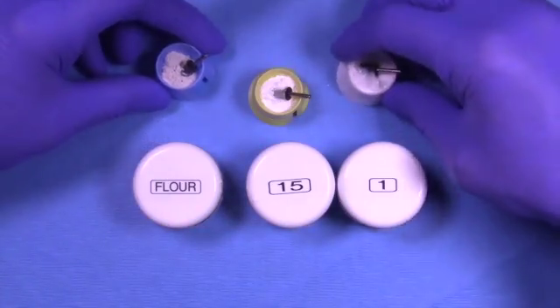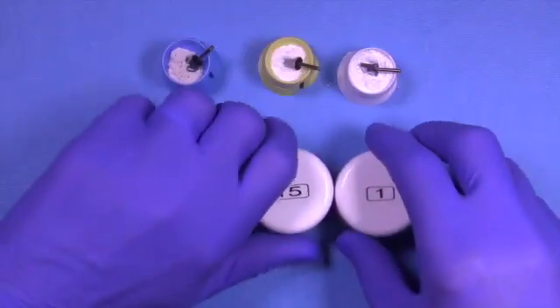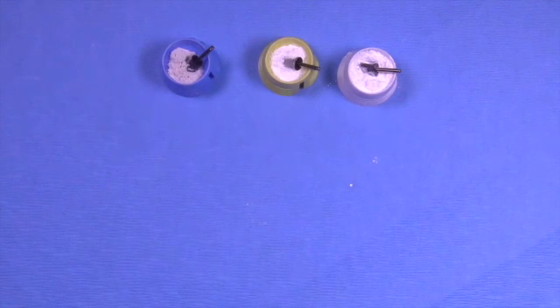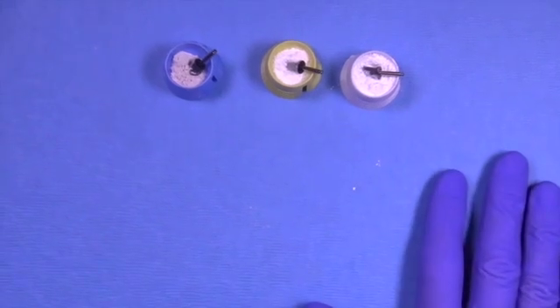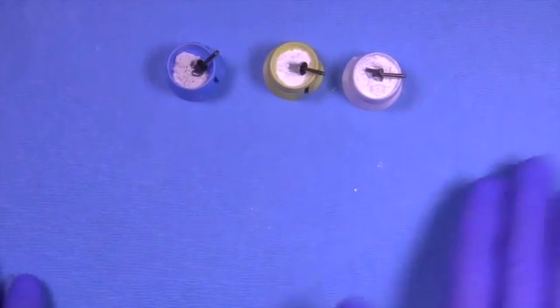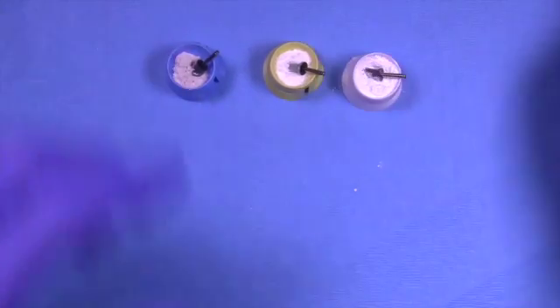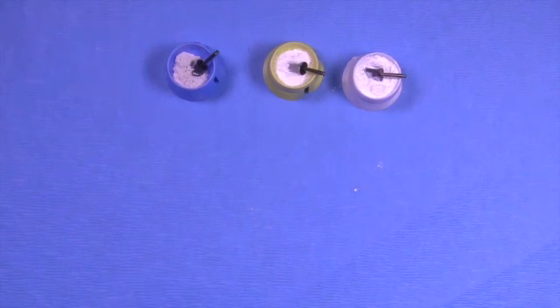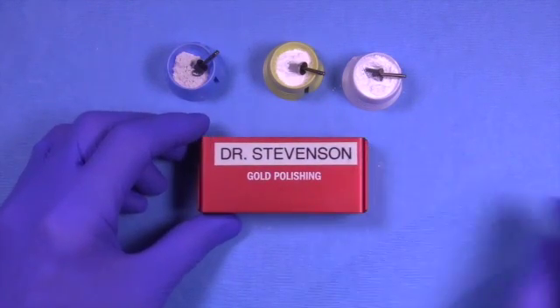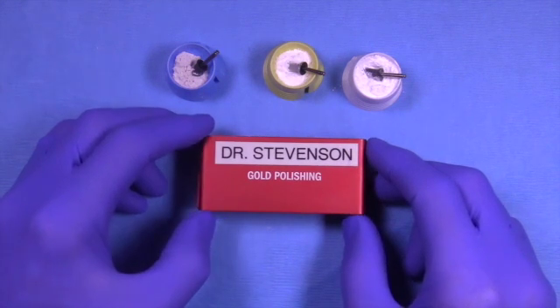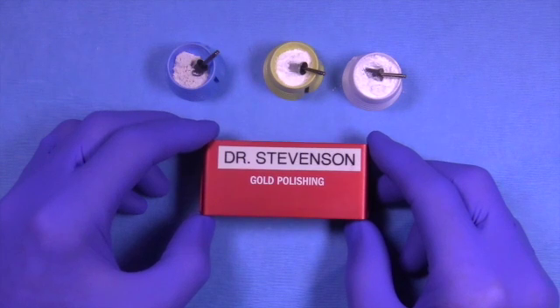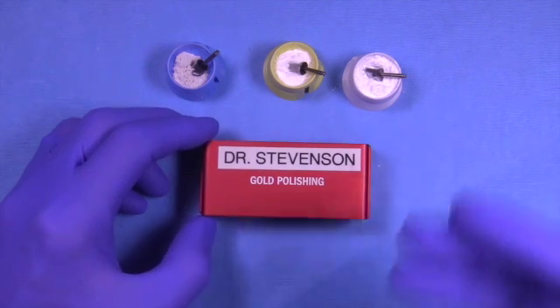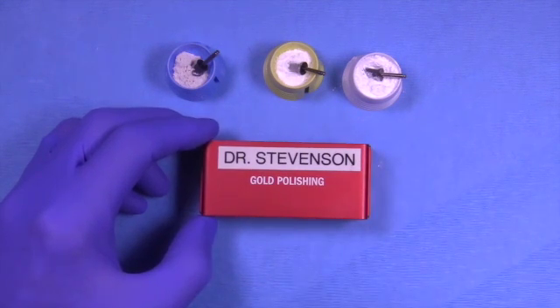Let's just go over this a little bit and understand that they look kind of the same, at least the last two, when you have them sitting out without any labels. So I like to utilize plastic dappen dishes that have different colors and go from the darkest to the lightest color, so I always know which one's which.